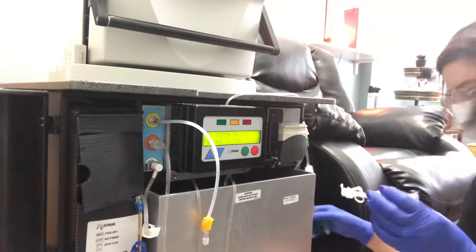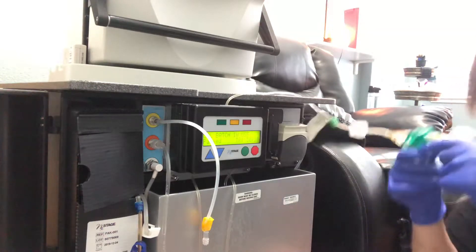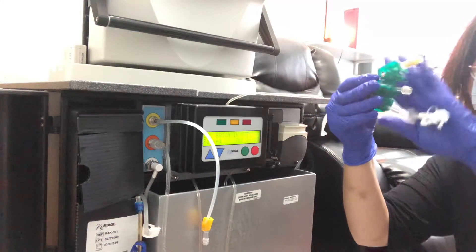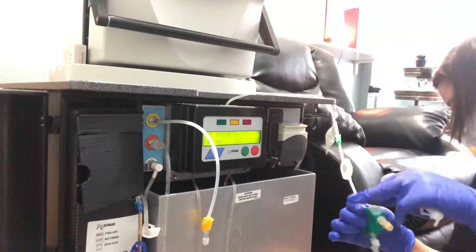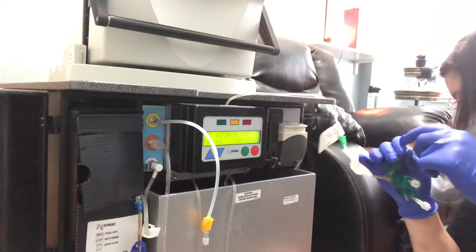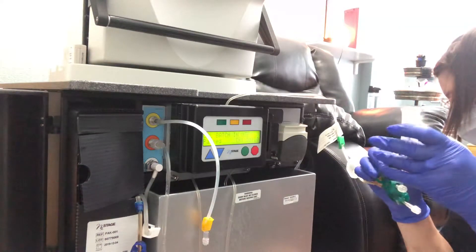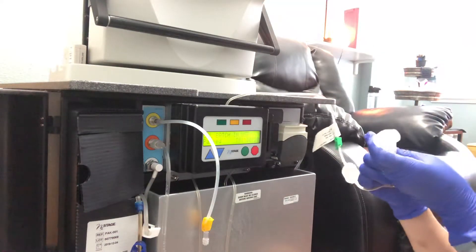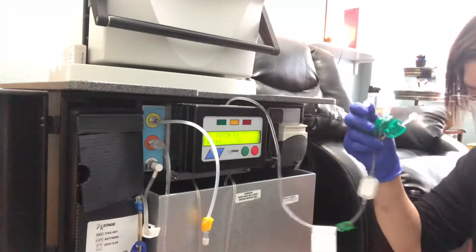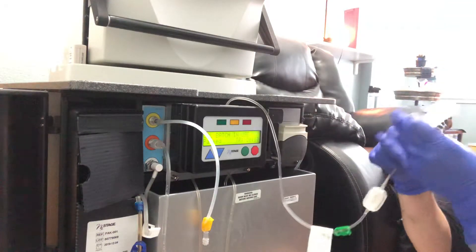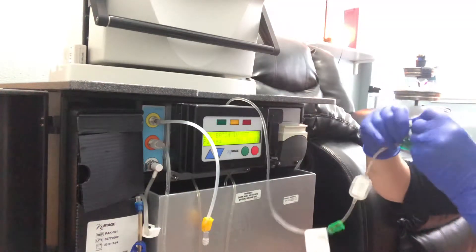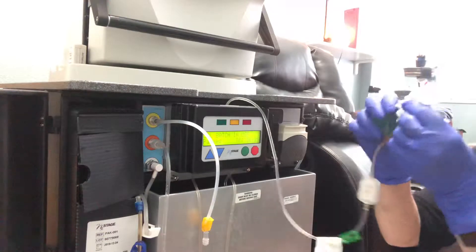Okay, so now I'm going to connect the green chicken foot of the pure flow. See, I've used two, now I have one left. I'm going to connect the female-to-female connector with the vacuette onto the chicken foot here. And then I'm going to tie this onto the chicken foot, okay.